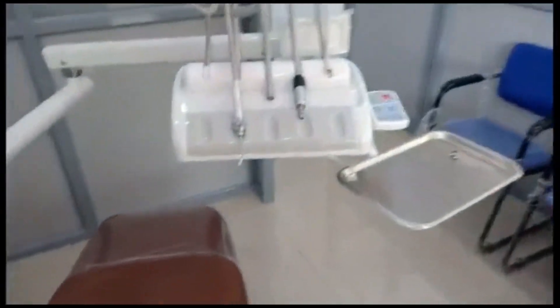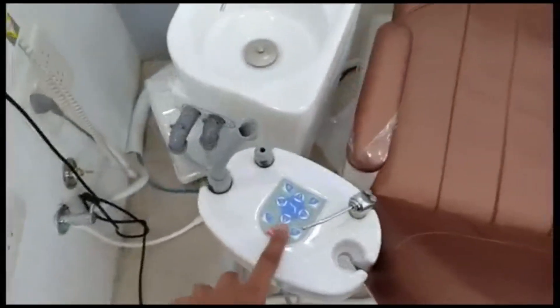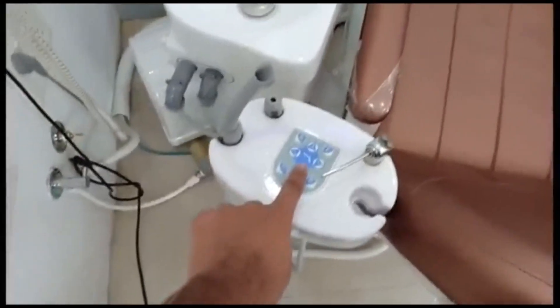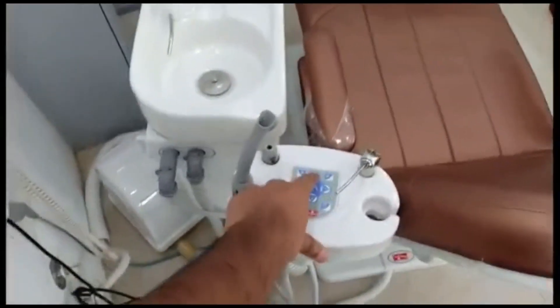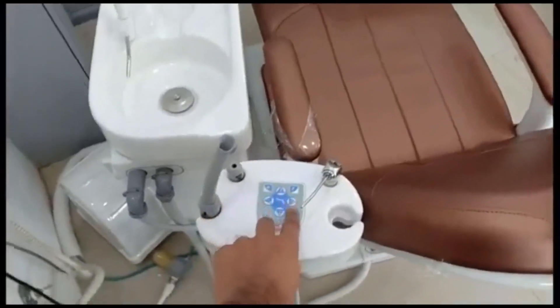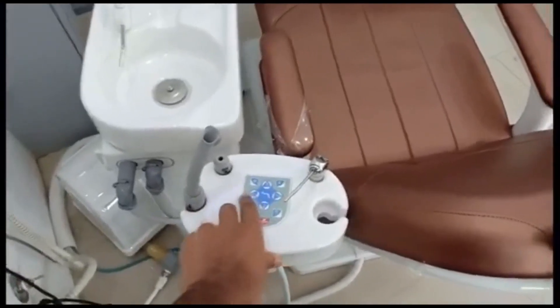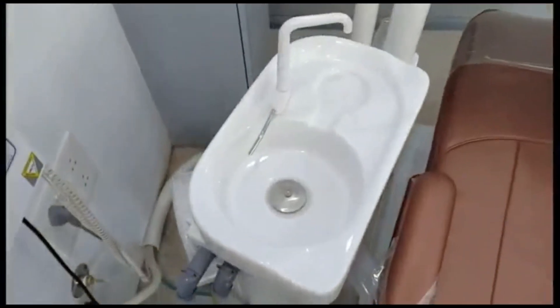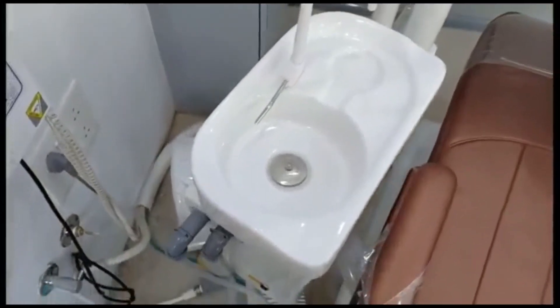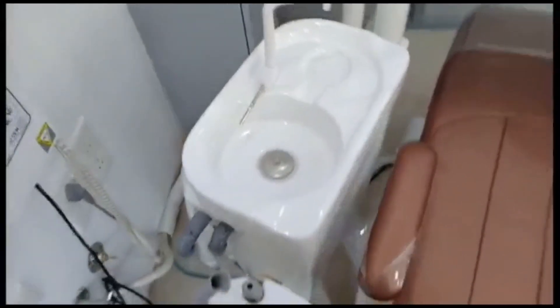This panel may not be very accessible at certain times during the procedure, so we can press this button to make positional changes. This part is known as the spittoon, where the patient spits during procedures.